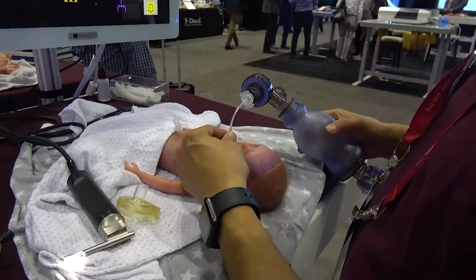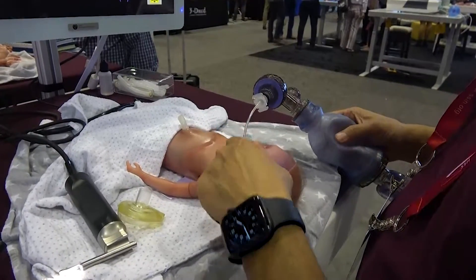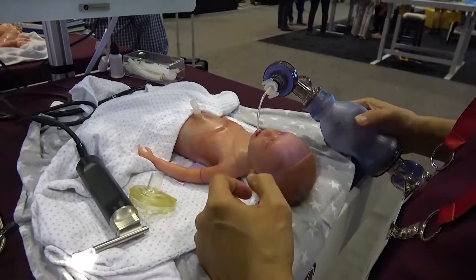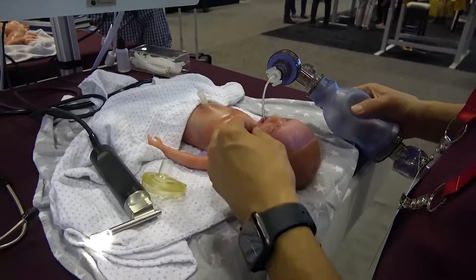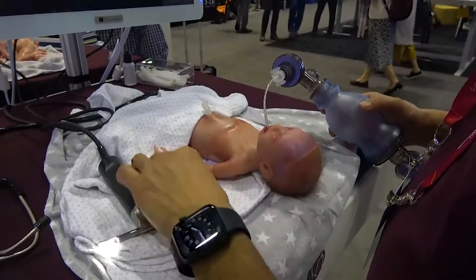If I'm in too deep, then I'm only ventilating one side.